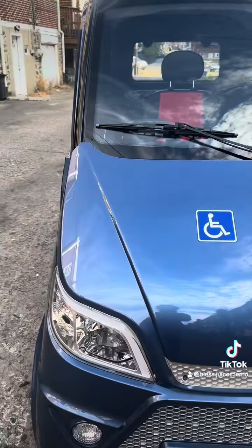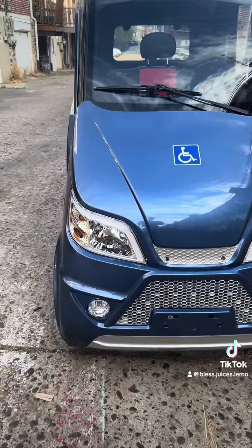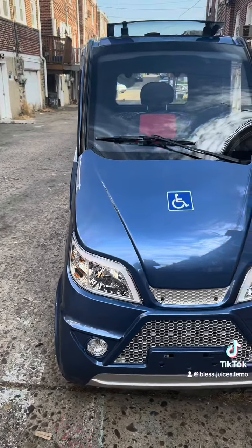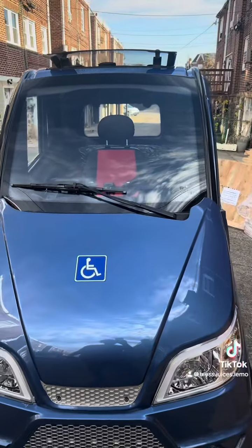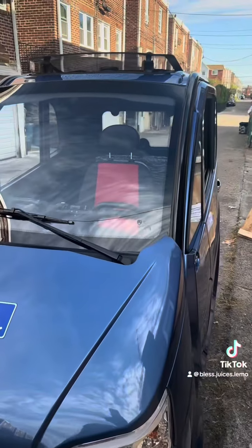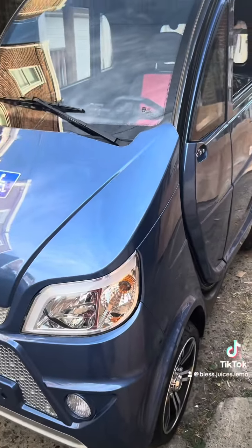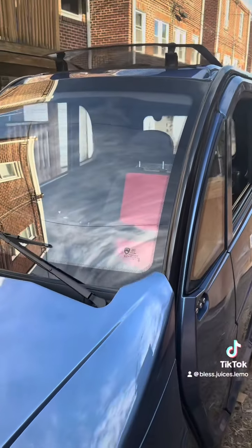This is the video today — look at it, the inside and the outside, how it looks, the steering wheel and everything. I hope you love it. Please share the video so people that don't know about this can get to know.